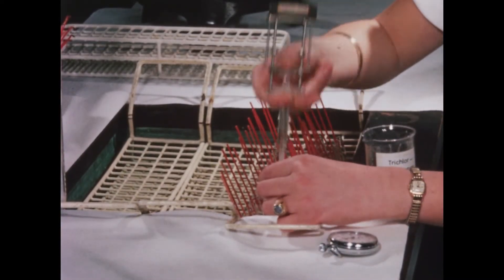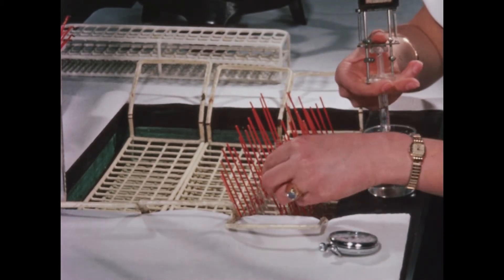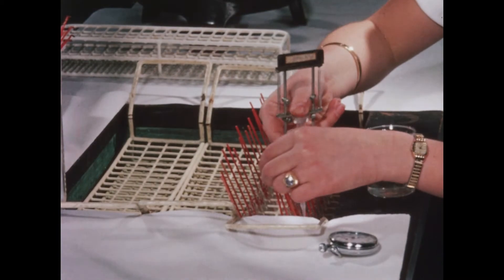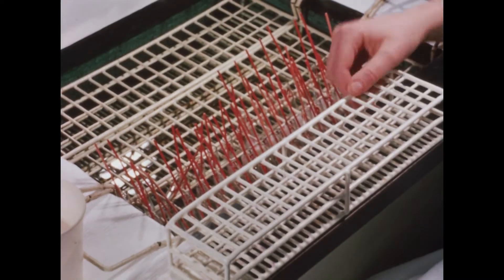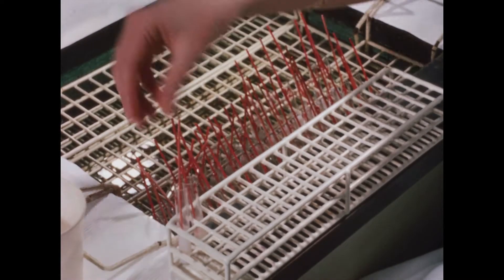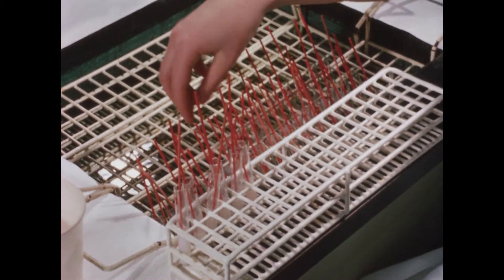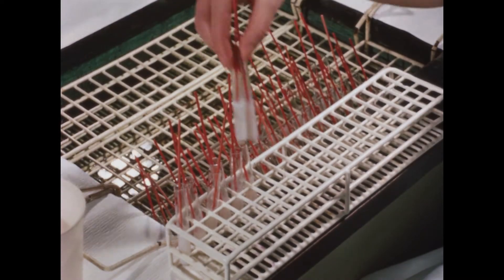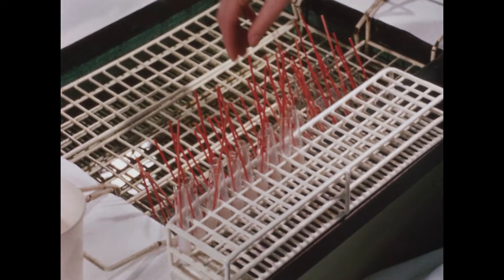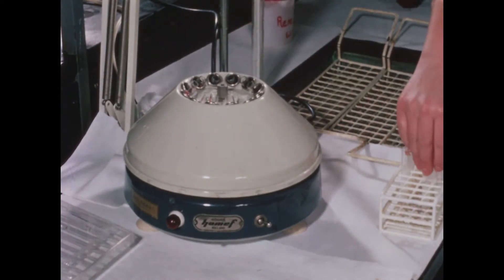You have now seen a determination of transaminase in the serum. Various reagents have been added to the serum specimen and the enzymatic processes have taken place while the tubes were immersed in a water bath of 37 degrees centigrade. At the end of exactly 10 minutes, the enzymatic process is stopped by protein precipitation with trichloroacetic acid and the tubes are centrifuged.